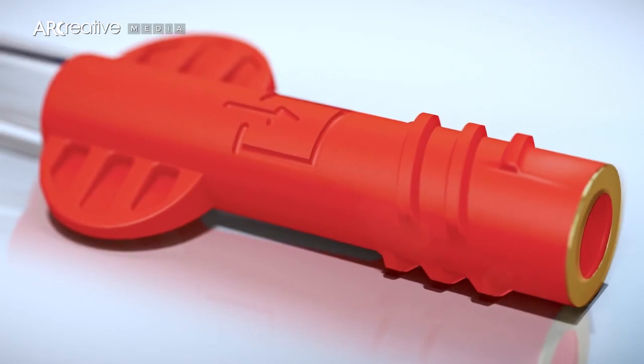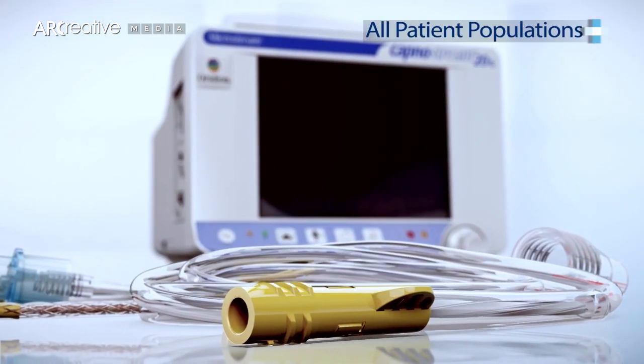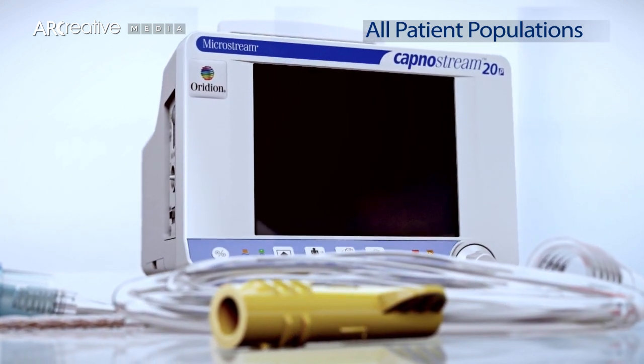Microstream Capnography can be used with both intubated and non-intubated patients on virtually all patient populations from neonate to adult and across multiple areas of care.